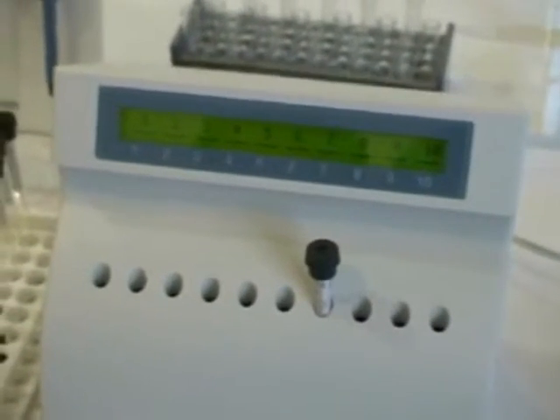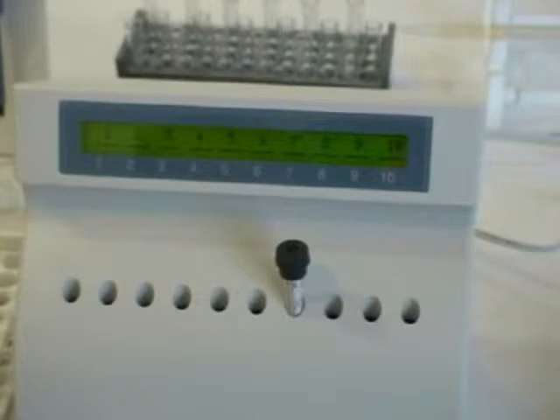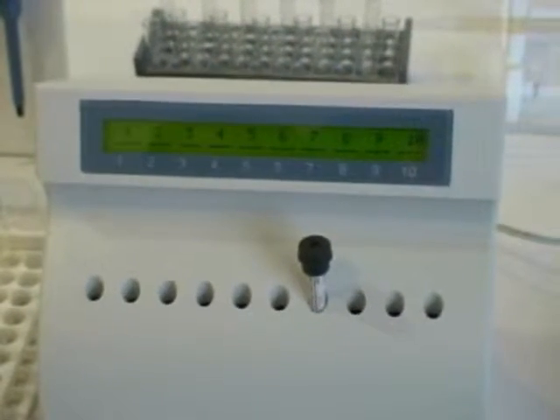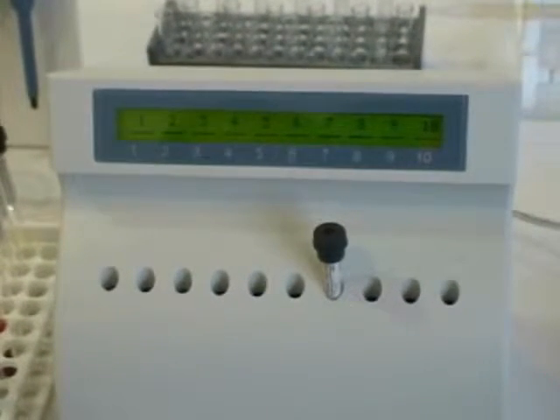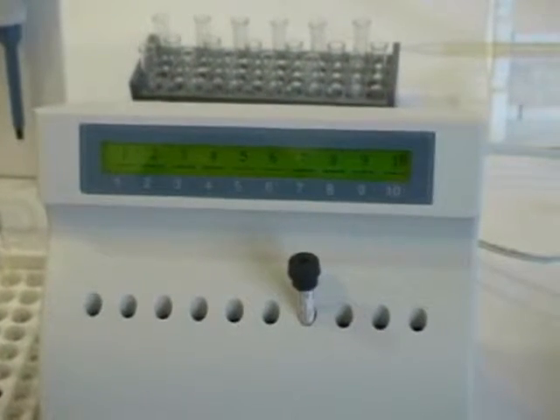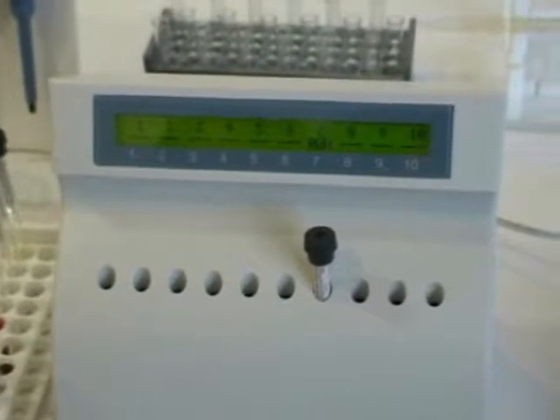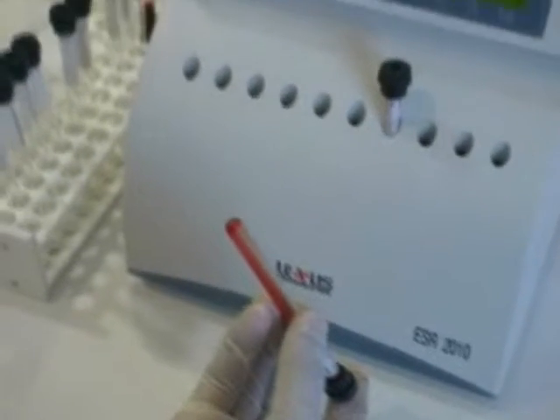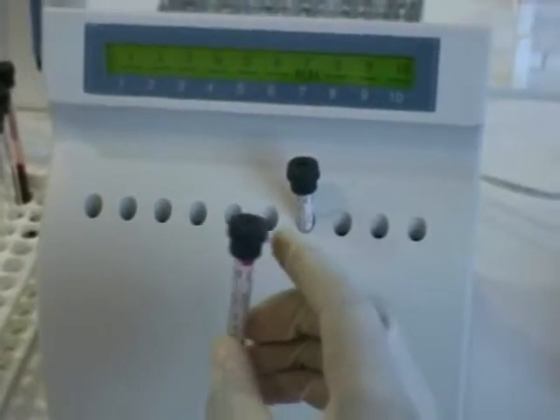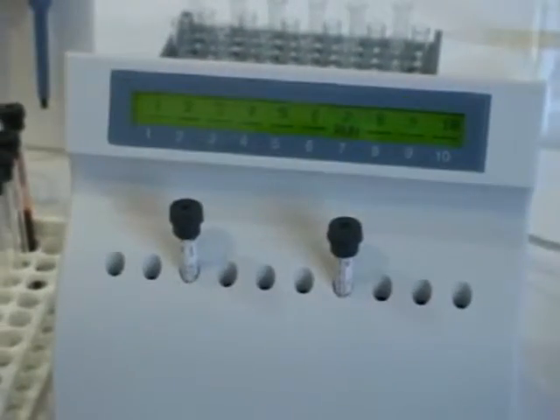ESR-2010 is a random access analyzer. Insert the ESR tube for testing into any of the ten chambers you wish. Run on the 7th position of the LCD indicates the start of the test time. The result of chamber 7 here will be timed and displayed at the end of 30 minutes on the LCD.